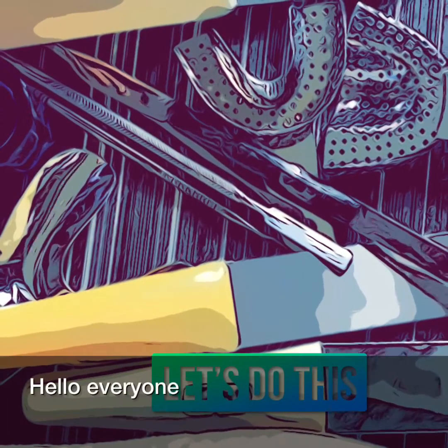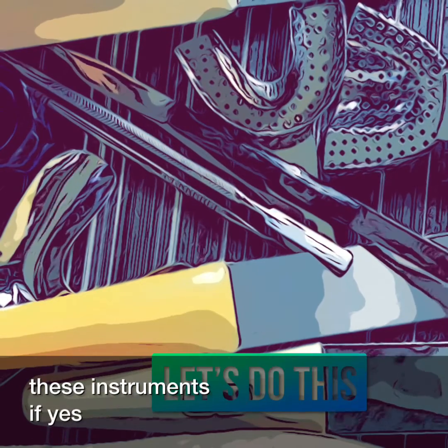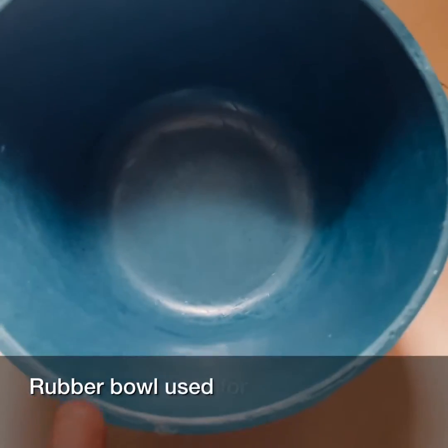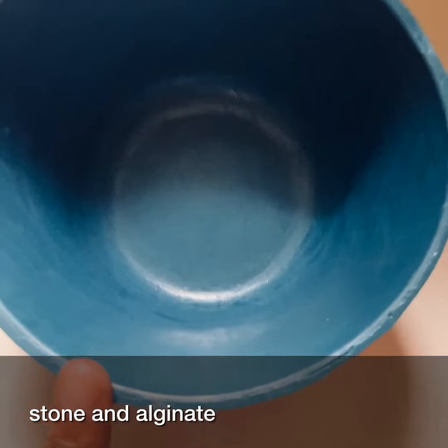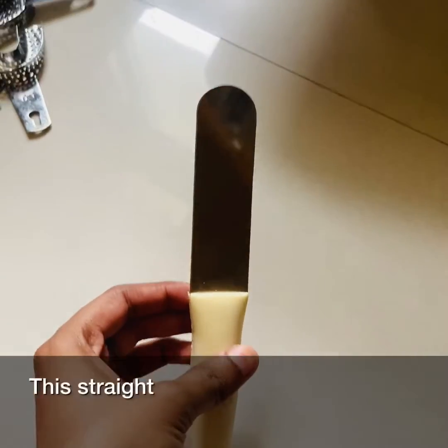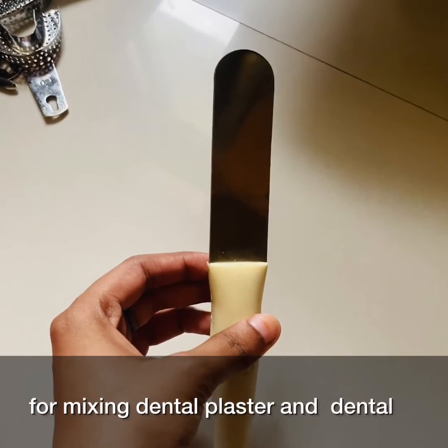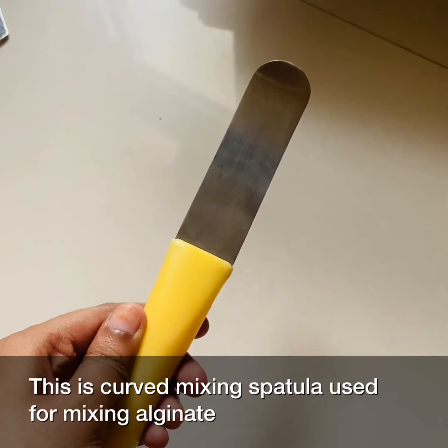Hello everyone. Are you confused while identifying these instruments? If yes, this video can hopefully clear your doubts. This is a rubber bowl, used for the manipulation of dental plaster, dental stone, and alginate. This is a straight mixing spatula, used for mixing dental plaster and dental stone. This is a curved mixing spatula, used for mixing alginate.